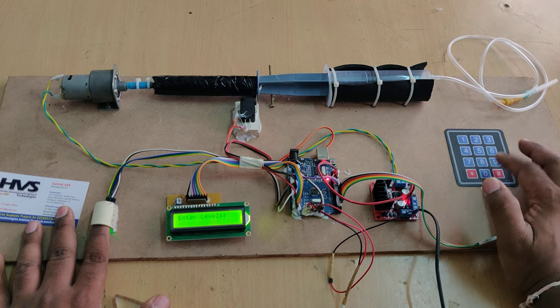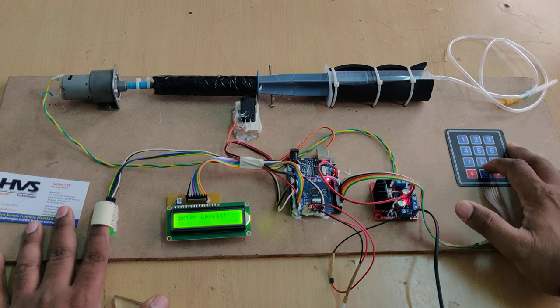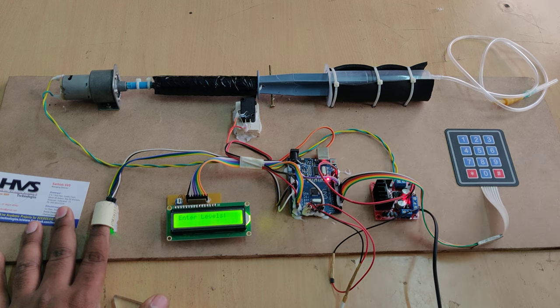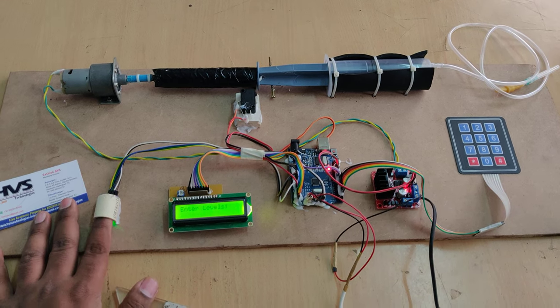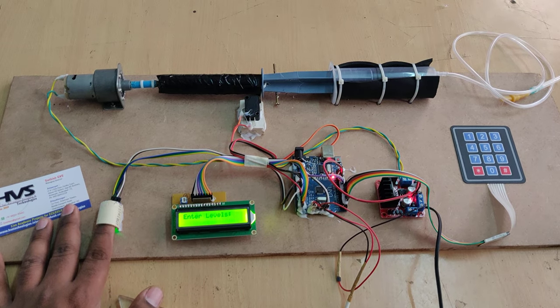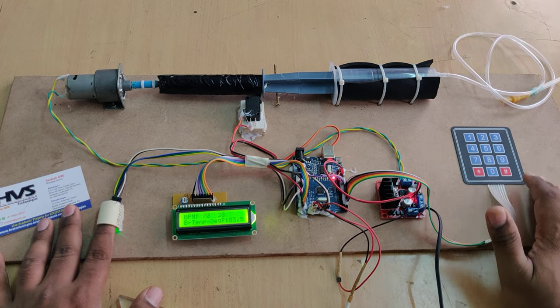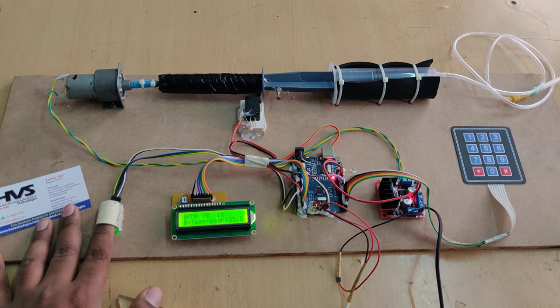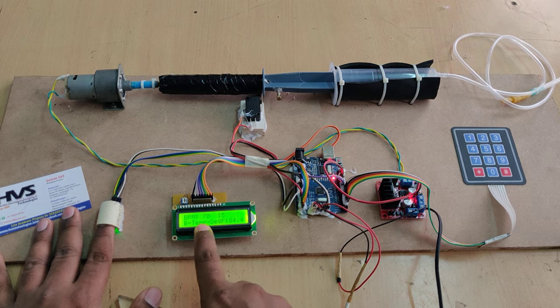Levels must be entered in three-digit format. For example, to enter 20 levels, type 020. We've entered 020 and the injection machine has started moving. You can see the level decrement on screen, and in parallel the heart rate and temperature are displayed.